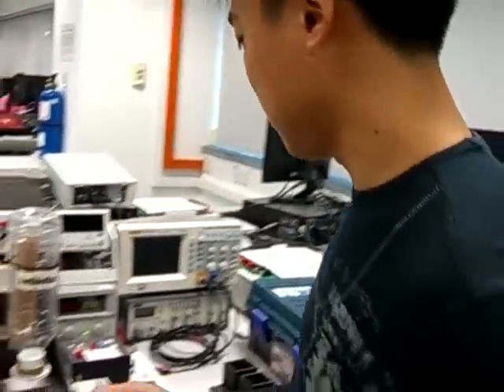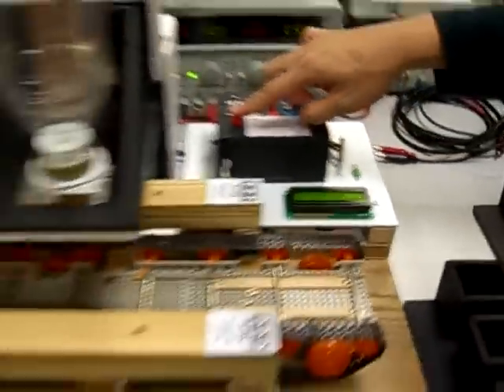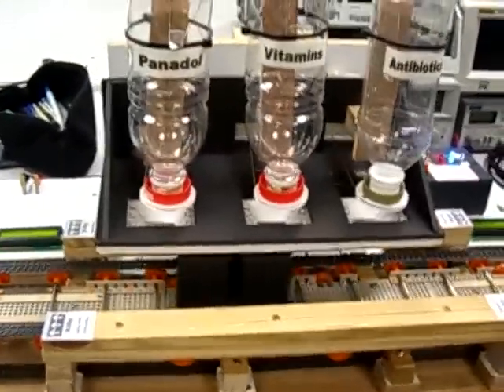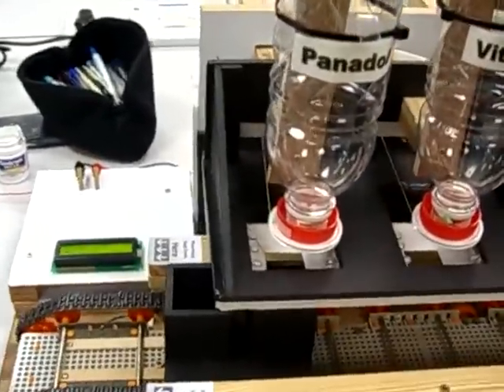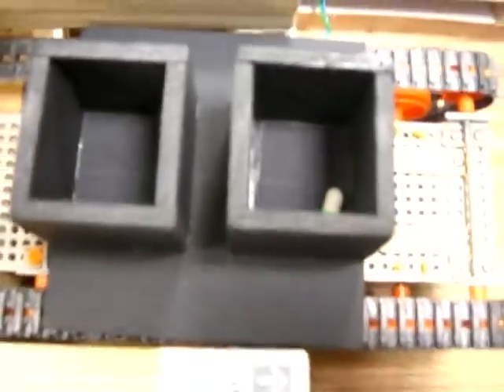We go over to dispense. Because it's only one Panadol, we can use a two-compartment container. The patient's name is Kali — scroll to Kali and press and hold to dispense. It first counts the number of compartments, which is two, then dispenses one pill. So we have one Panadol for Kali.